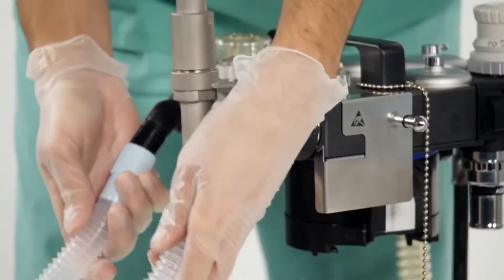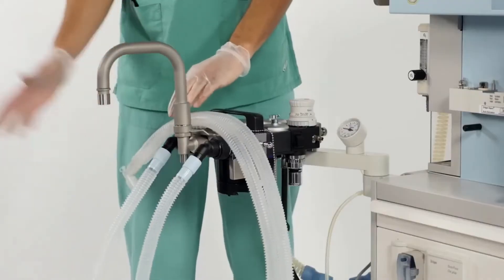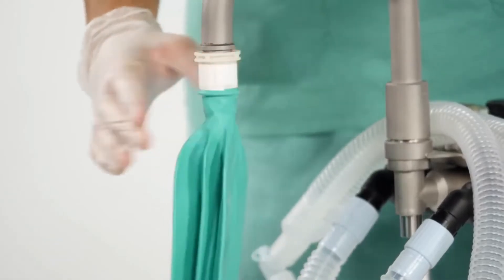Connect the patient breathing hoses and the manual breathing bag to the inspiratory, expiratory and bag hose ports on the COSY.